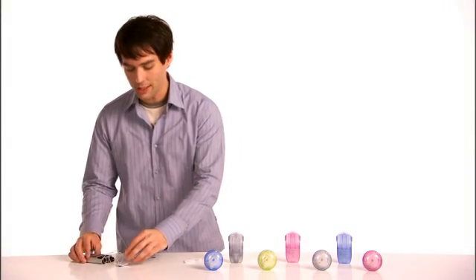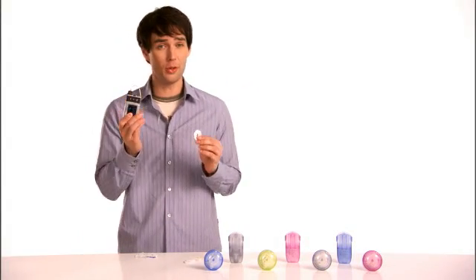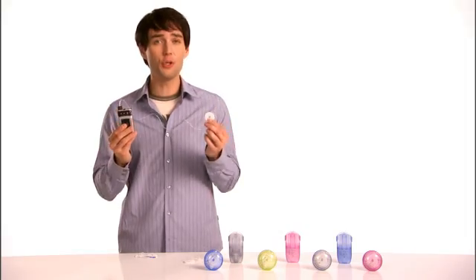So how does insulin get out of your OneTouch Ping pump and into you? Two words: infusion set.